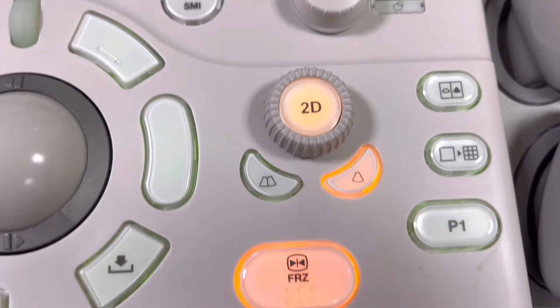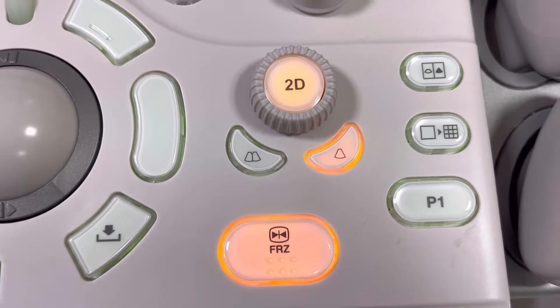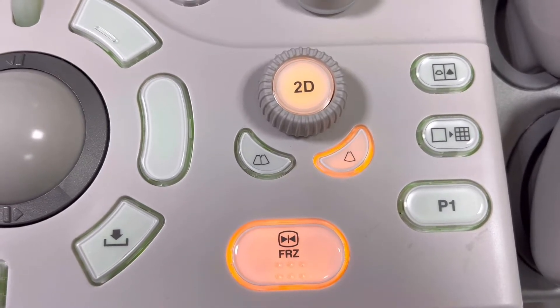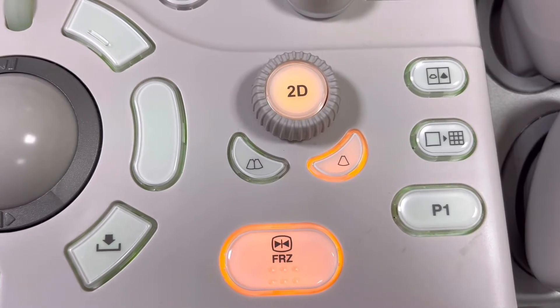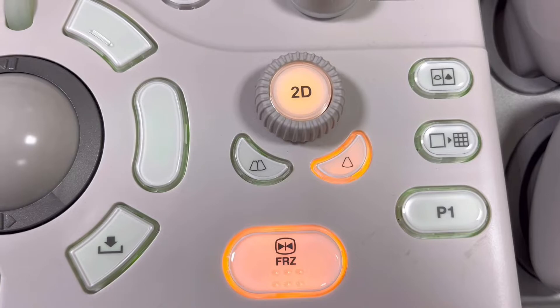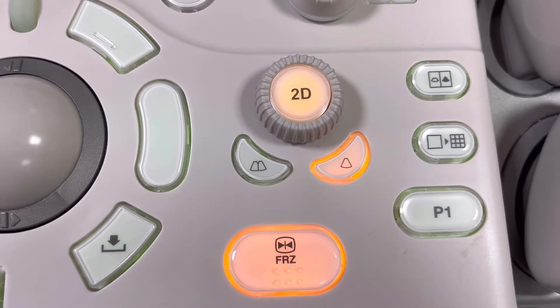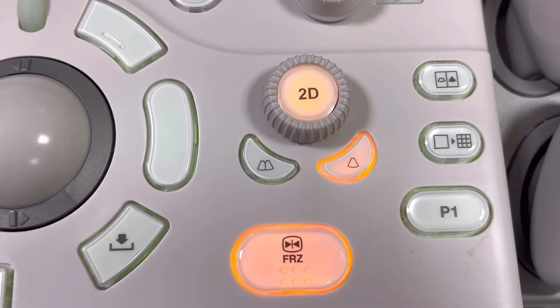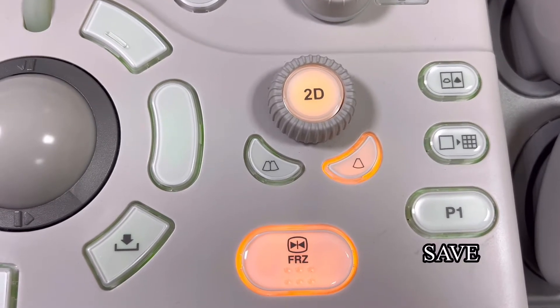Basically, this is your 2D or B-mode knob that is used to adjust the overall brightness of your image. The controls or buttons to split the screen or to utilize the four quadrants are also located here, along with the freeze button and the button for storing your images to the machine.